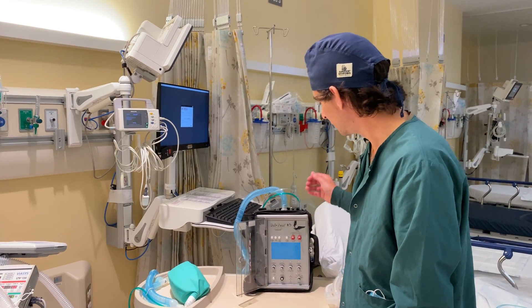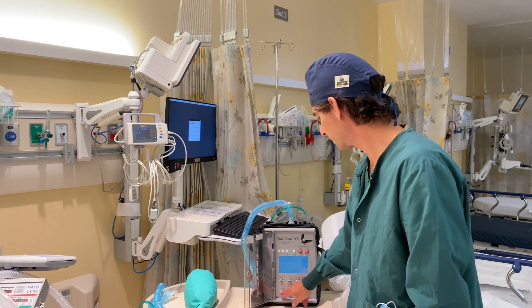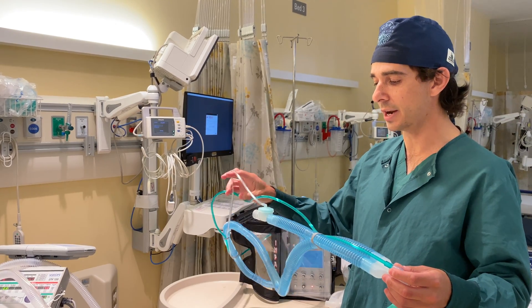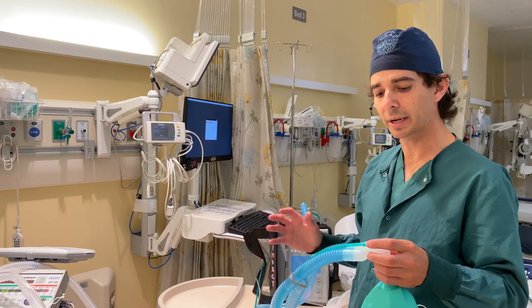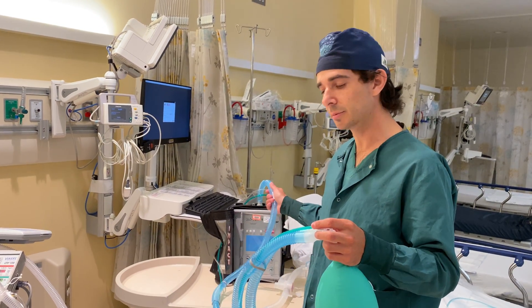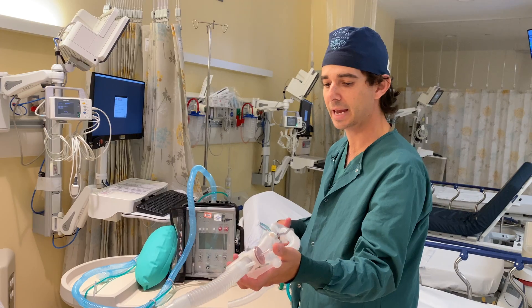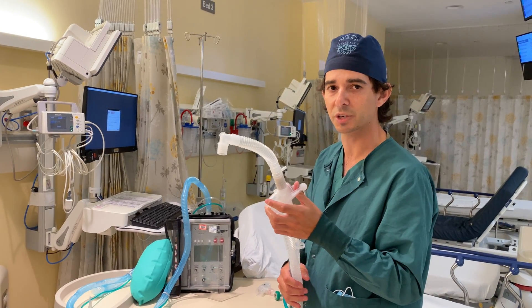As I turn it on, you'll hear the pump — it will begin to suck air in and deliver breaths to our patient. This circuit is also a single-limb circuit. It too has additional tubes, but only two: a pressure sensor and another tube that controls the PEEP valve, which is built into the expiratory limb. Most importantly, I don't have an HME filter or a viral filter in here — both of which are needed just like on the other models. Lastly, this single-limb circuit cannot be used on the other ventilator and vice versa. There are different setups for standard single-limb circuits that can be used on ventilators like the Eagle or the Zoll 731, although the manufacturer will have specifications on which ventilators they would prefer. Thanks very much.